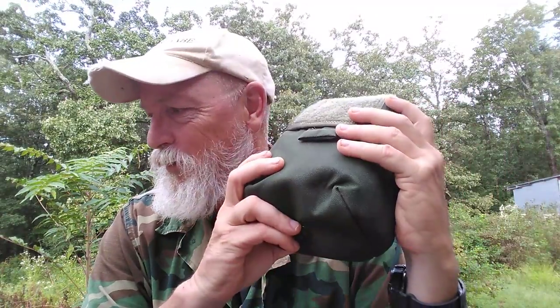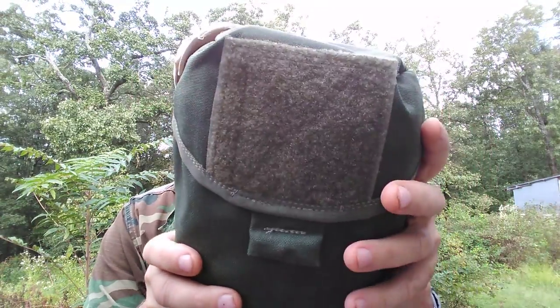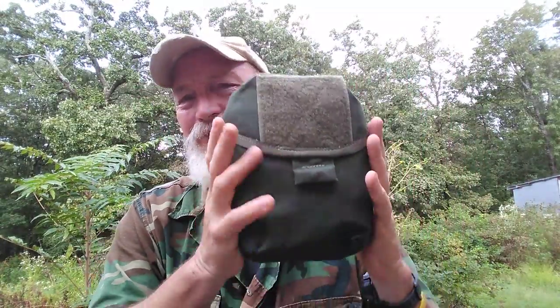He does top-notch gear. These kits are currently with PJs. They're with two different military units out in the desert that have ordered them. SWAT teams have ordered them. They've been provided to churches and rescue groups. They come in a variety of colors — this is the one I wanted. So without further ado, let's get into it.